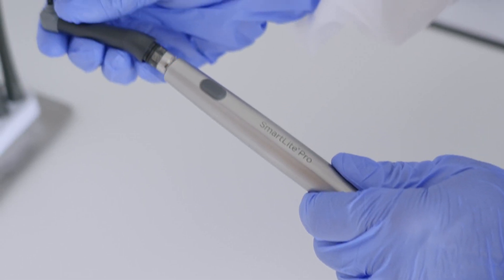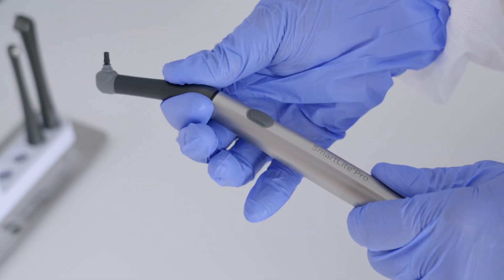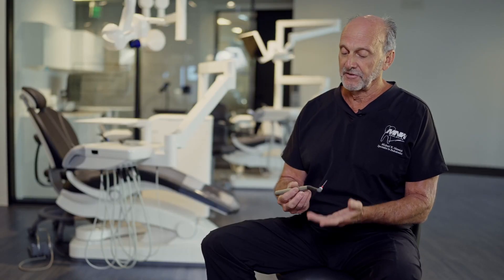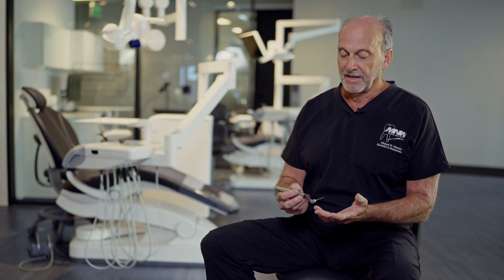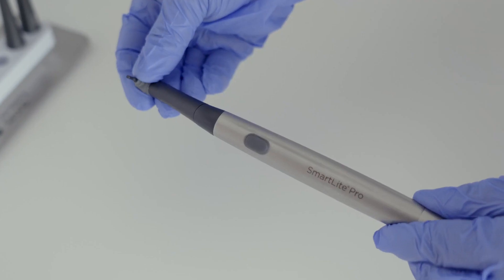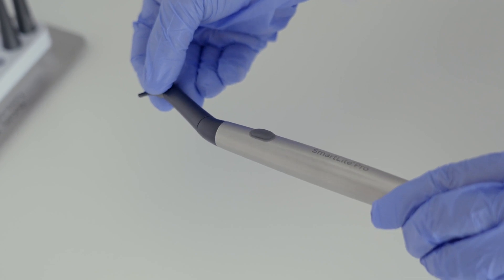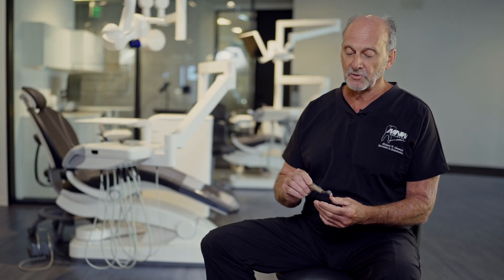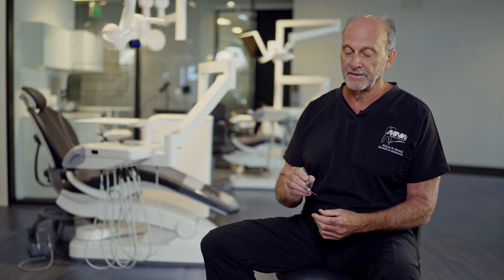First of all, I think it's more powerful. It's very high-tech looking and the ergonomics are very sleek. It's very lightweight and balanced really nicely in my hands. When I first had an opportunity to use this, I was unaware that the head rotates very easily — and this becomes critical because this is the on/off button here.